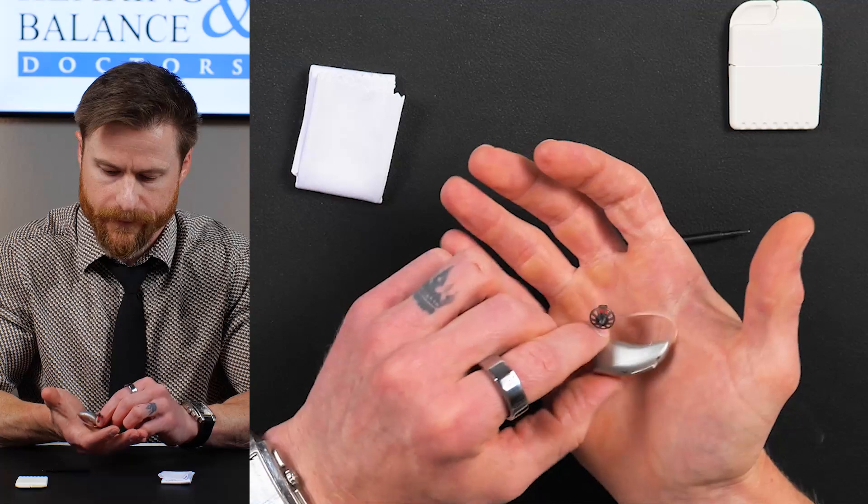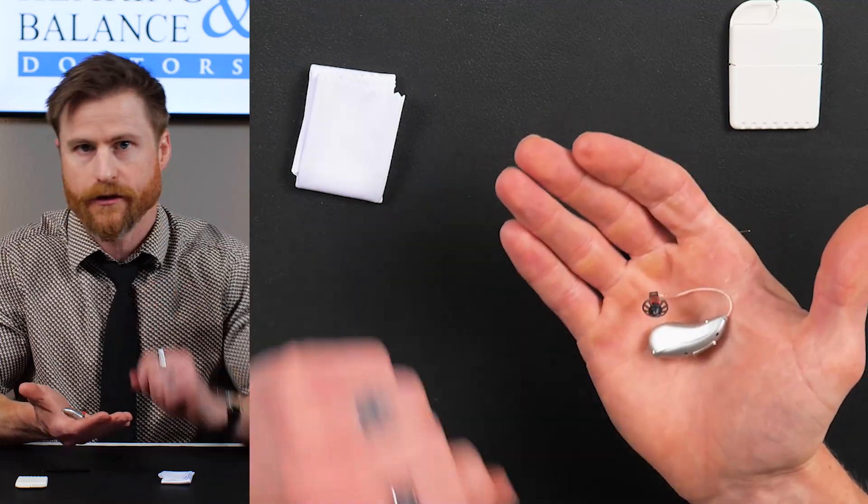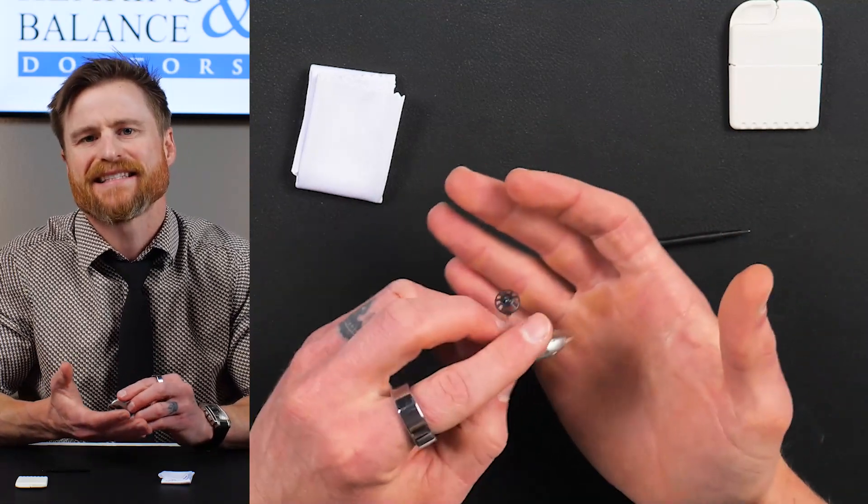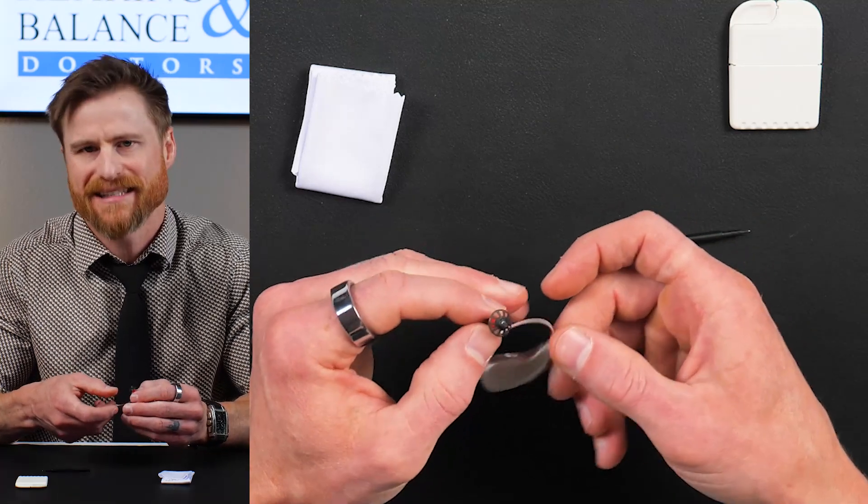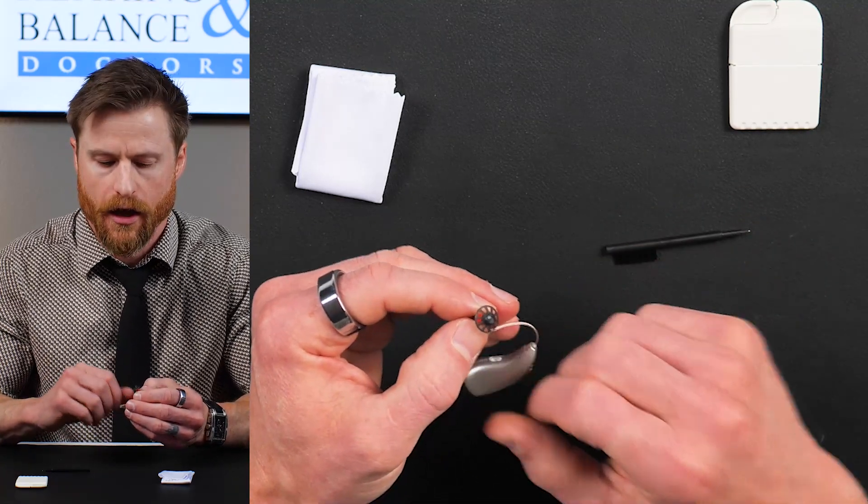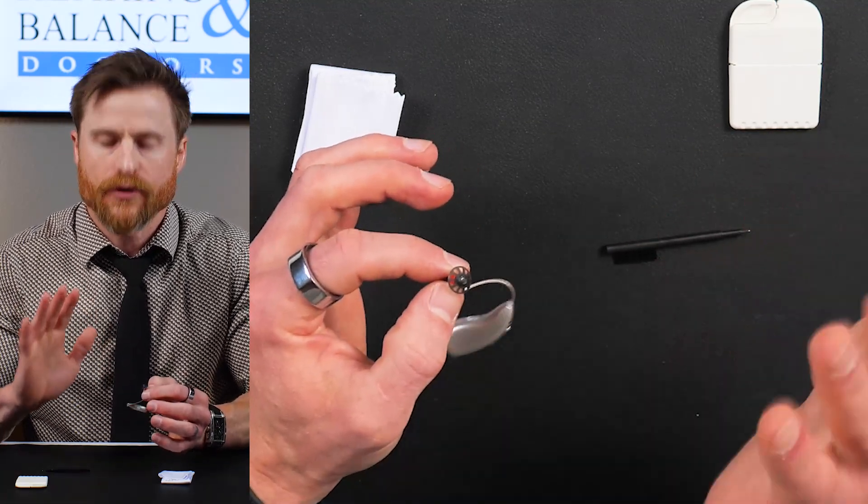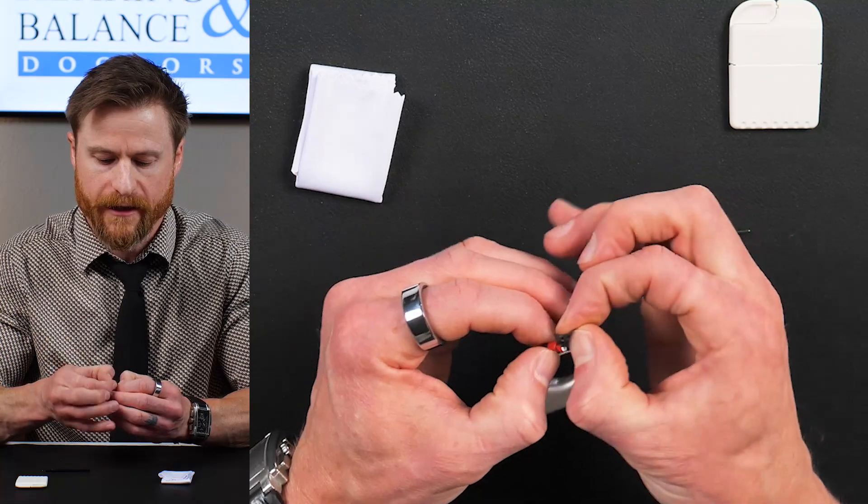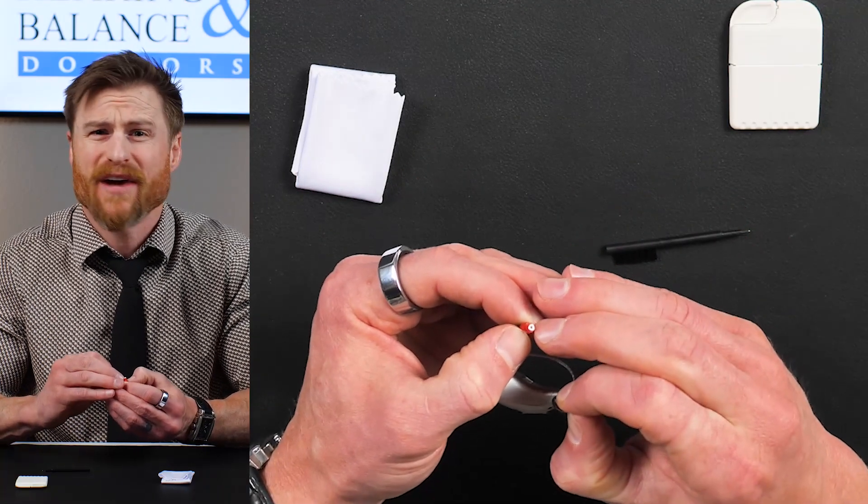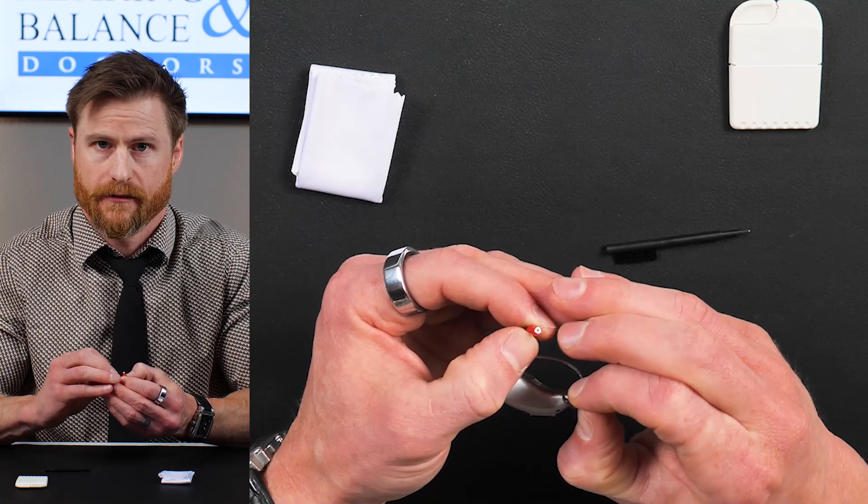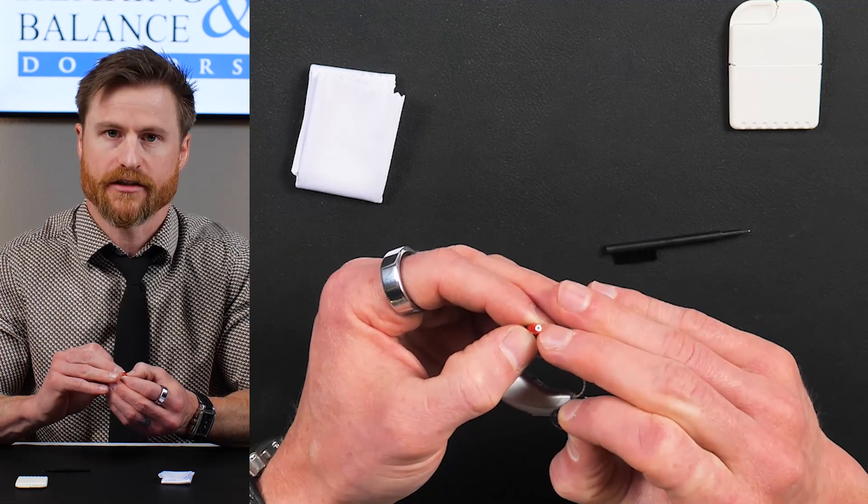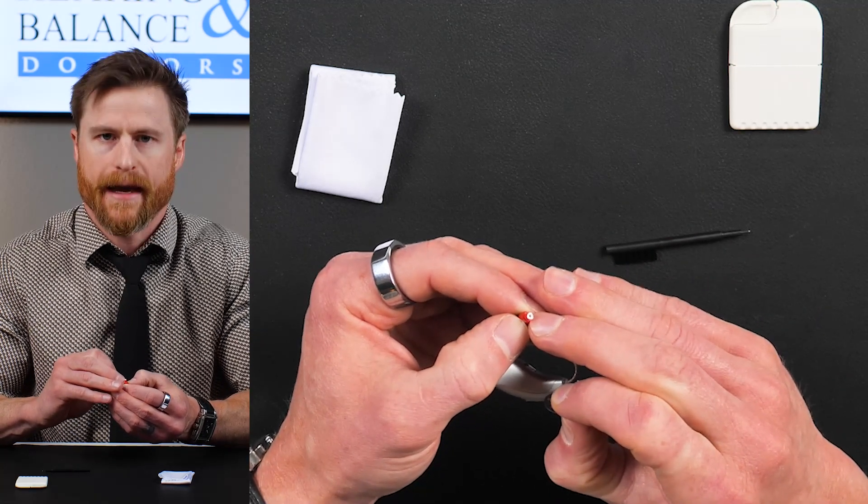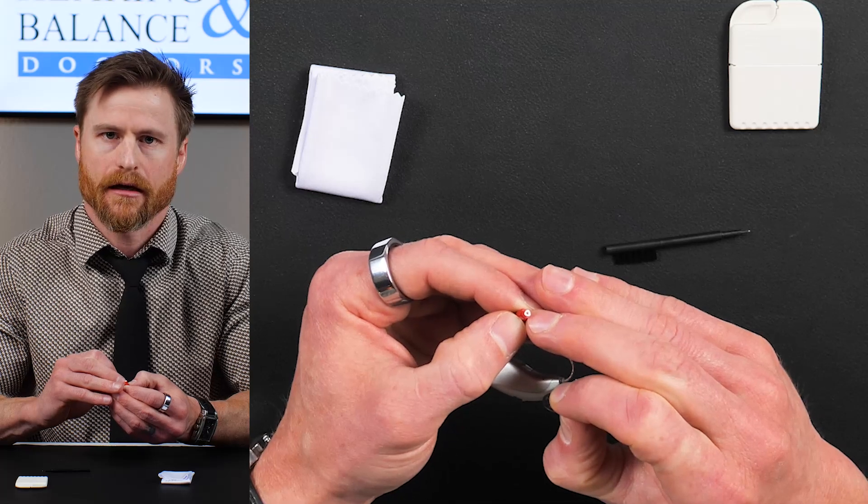So the brushing, try to do it every day before you put it in your ear. It takes 10 seconds to brush the microphones. It takes about 10 seconds to brush the dome. Most people don't have to change that little white filter in there. Most people don't have to change that very often. I've seen people go more than a year without even changing this dome. It really just depends on the consistency of your wax.